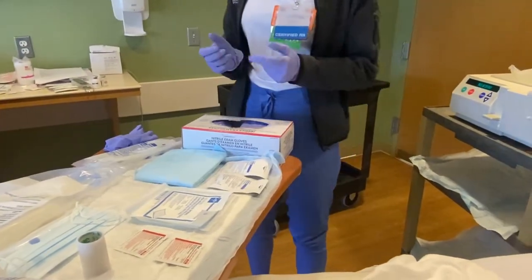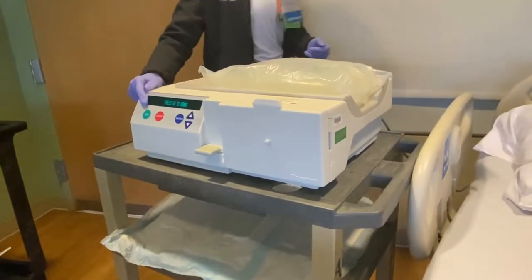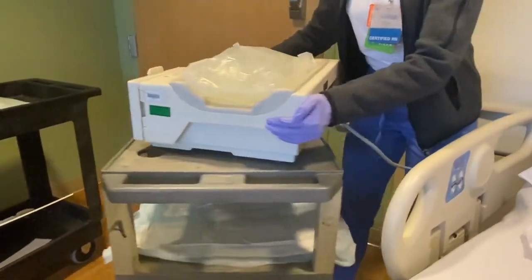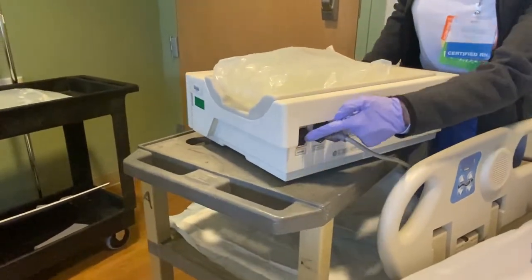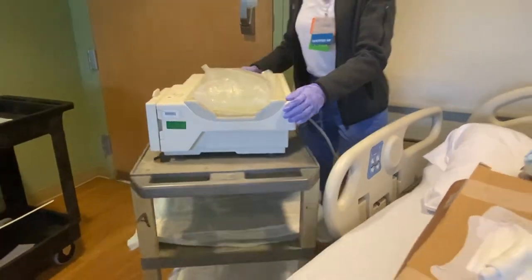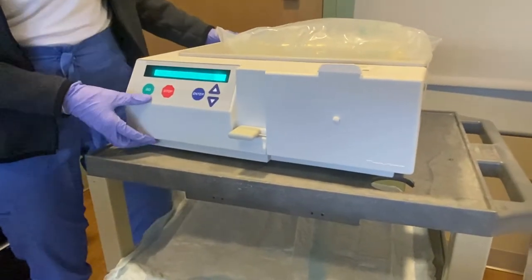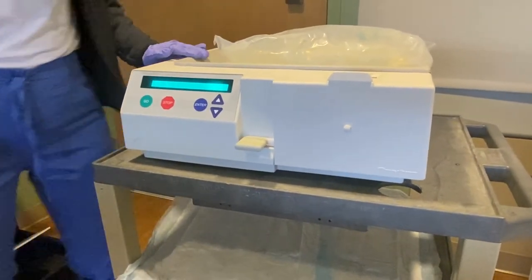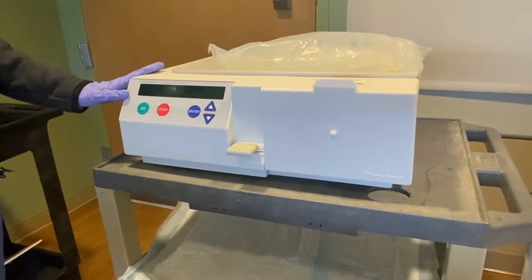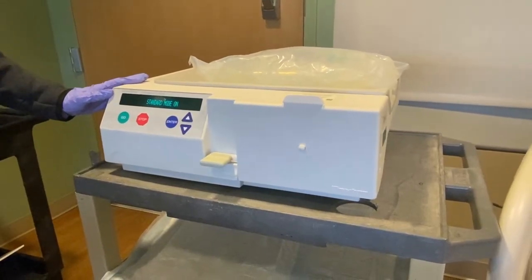Turn on the cycler using the on/off button in the back. Ensure that the cycler is connected to a red outlet. The cycler will complete self-testing and will state 'press go to start.' During cycler setup, ensure that you have a second RN present to verify that the proper bags were selected and the program is correct.